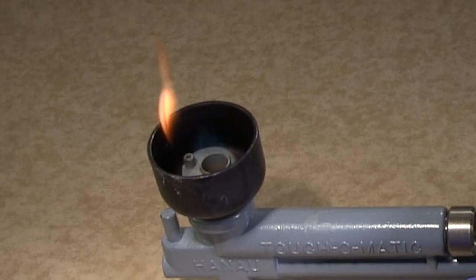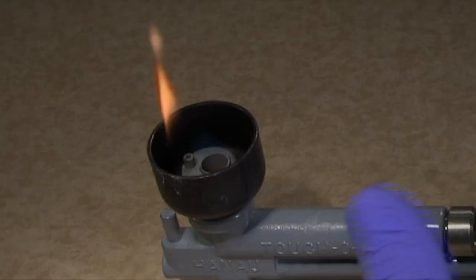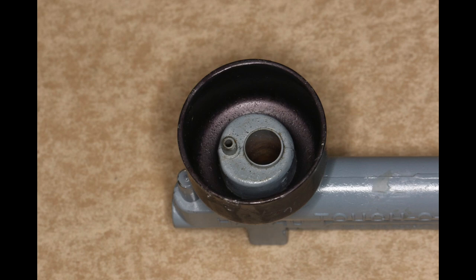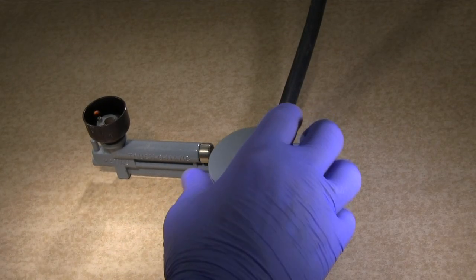Next, we will adjust the pilot light so our flame is not too yellow. At the end of the burner are two orifices, a larger one for the flame proper, and a smaller one which is the pilot light. If either of these are clogged with wax from previous use, the Bunsen burner will not operate properly.